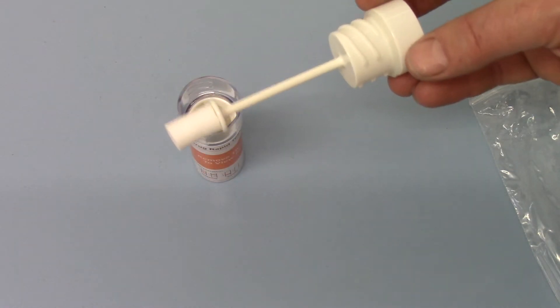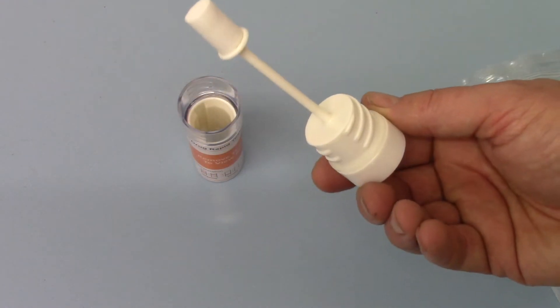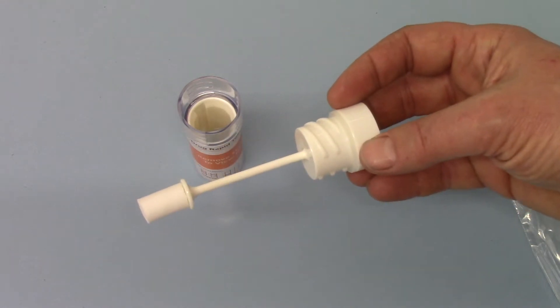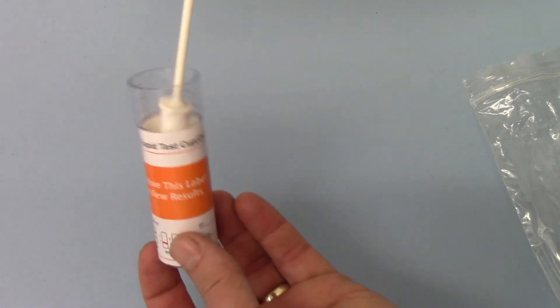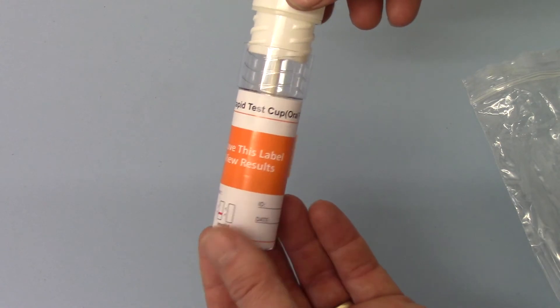So this whole device is given to the donor for the saliva. That goes into their mouth and you ask them to saturate that in saliva. It takes between 30 seconds and 3 minutes. And then the device, which you can't actually put together while the swab is solid, is screwed down and locks in place.